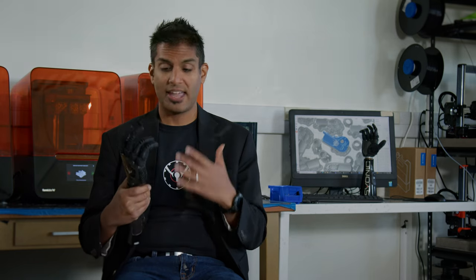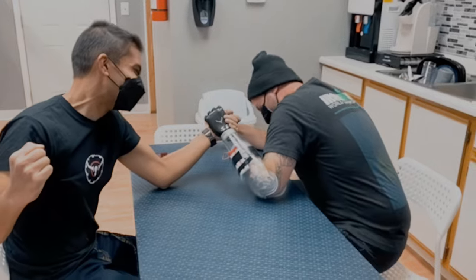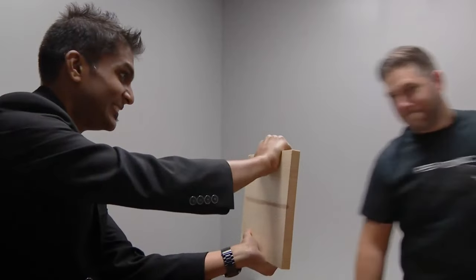Some of the biggest challenges we faced is how do we make this hand still low cost for us to manufacture, but more durable than anything else that's out there.